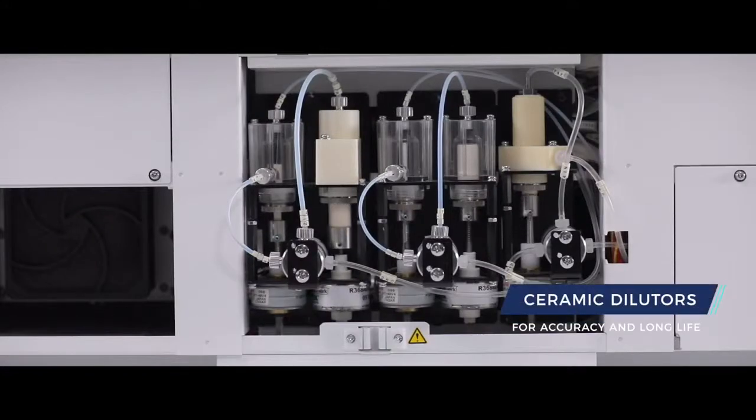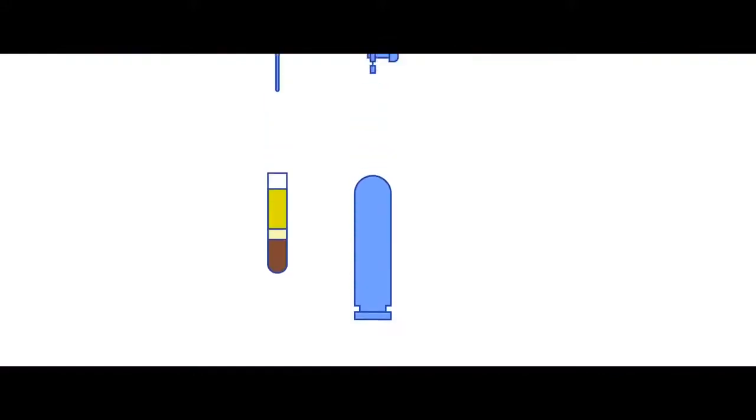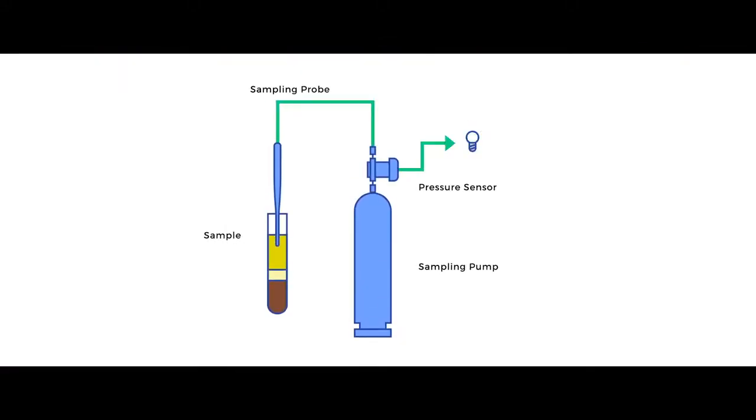The diluters are made up of ceramics which is known for accuracy and long life. The probe system offers liquid level detection, clot detection and collision protection.